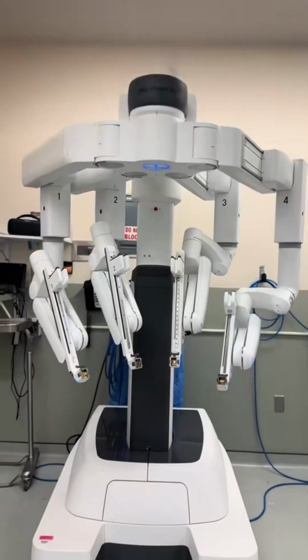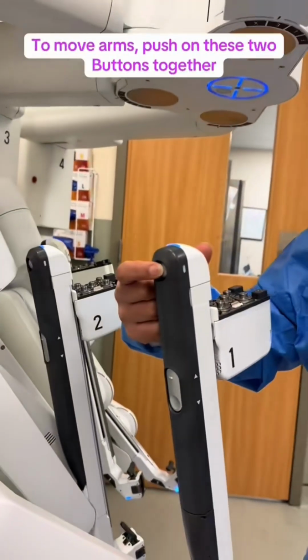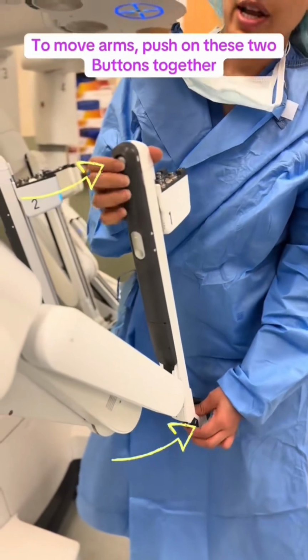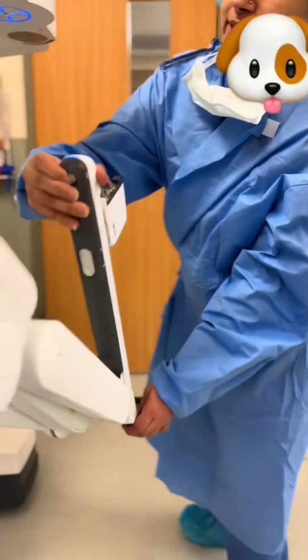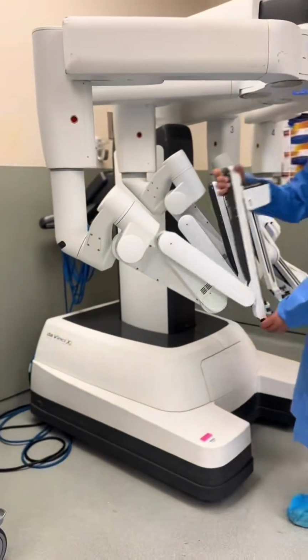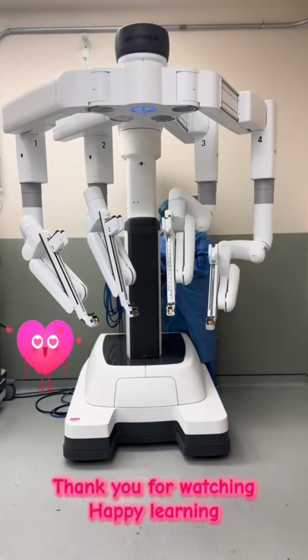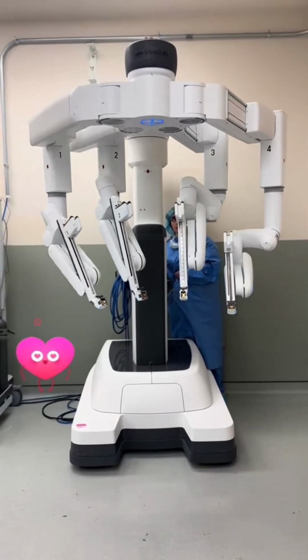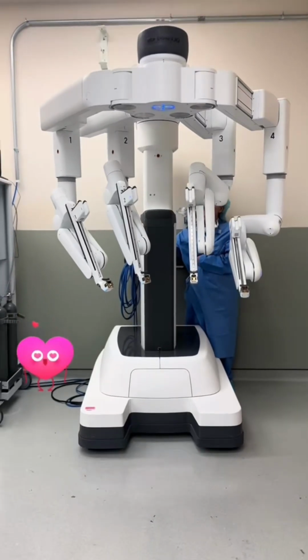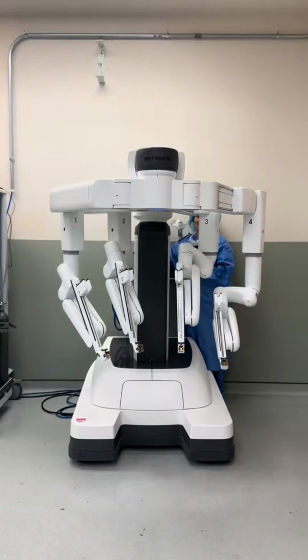Similarly, how to move the robotic arm? So there are two buttons at the top and at the middle, as you can see in the video. Push on those two buttons at the same time and you can move the arm sidewise or flex or extend the arm of the robot. So after the surgery is done, click on stow to store the robot in its designated space or area. One more thing, there is a red button which is for emergency stop.